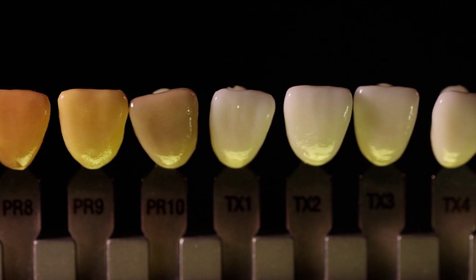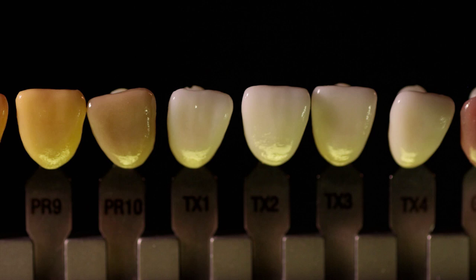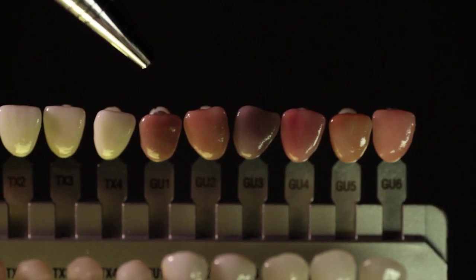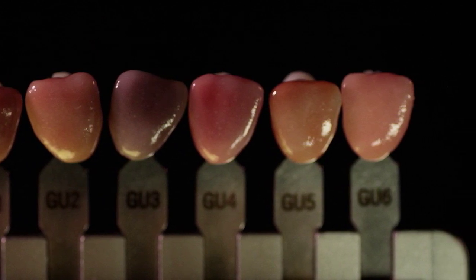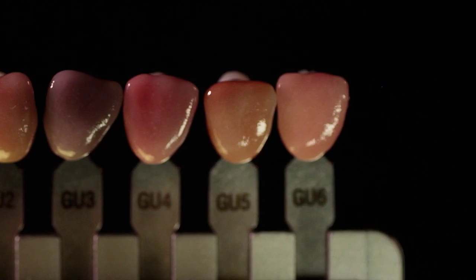Our surface texture possibilities include four commonly seen surfaces: natural, misty, vertical, and vertical horizontal. There are six possible tissue colors from which to choose, all in varying degrees of pink. Some are darker in tone than others, but all are created by blending the porcelain and applying an enamel overlay color based on what is seen in the mouth.